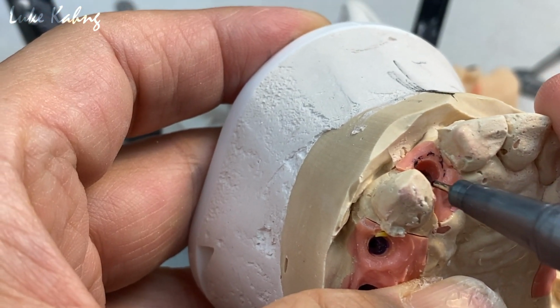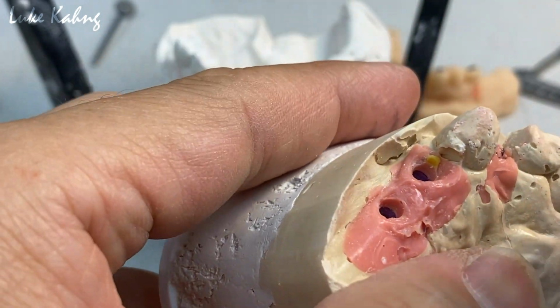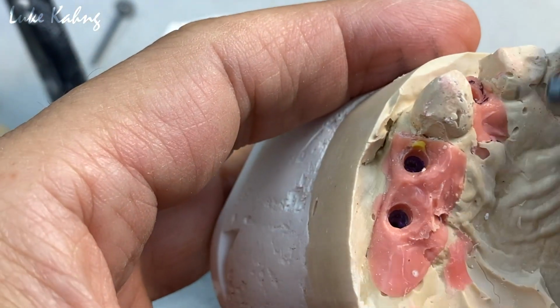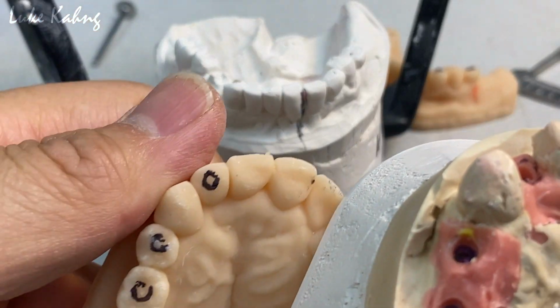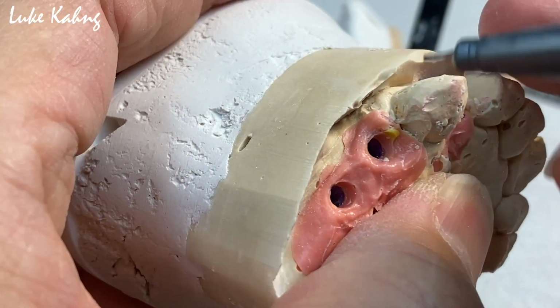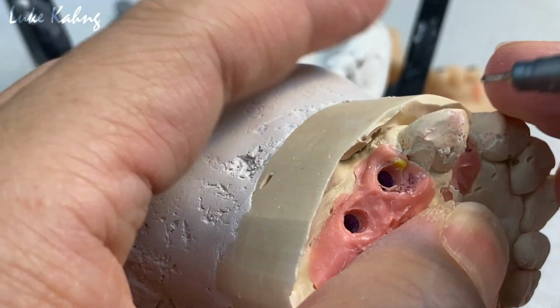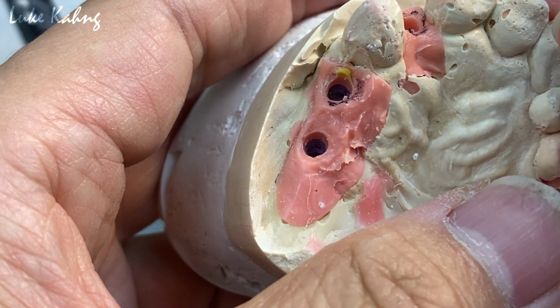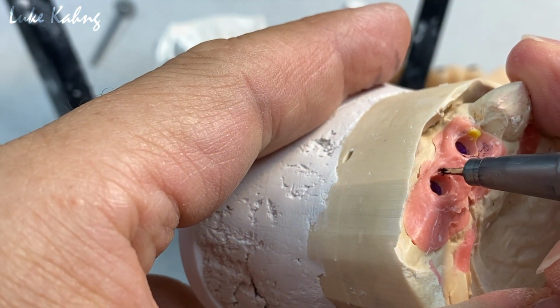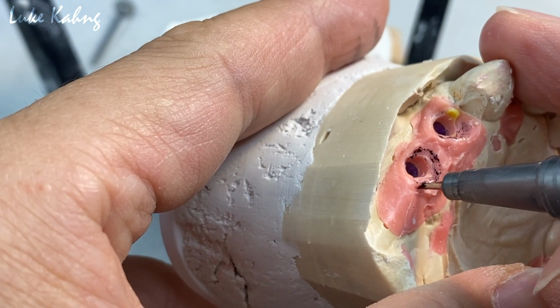Okay, so that's the first. You have to draw that. This is a premolar. Here's this bubble, so eliminate it. Okay. Now this one will be the premolar. See, just like that. So it's not too late, even though they did not do the correct digital plan. At this stage, we're going to make the provisional and preserve a good temporization for hygiene and also great contour.